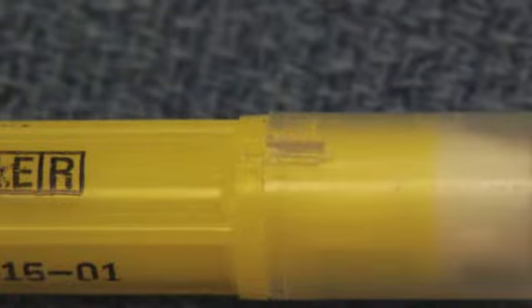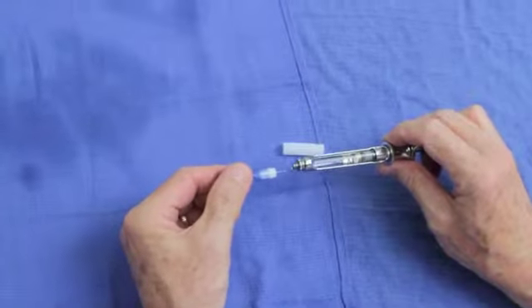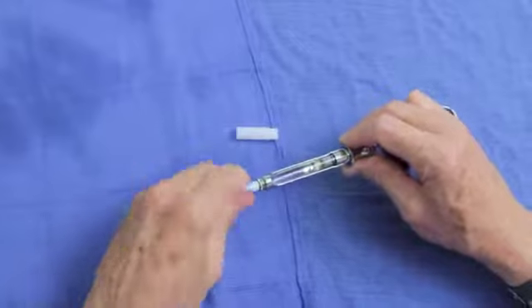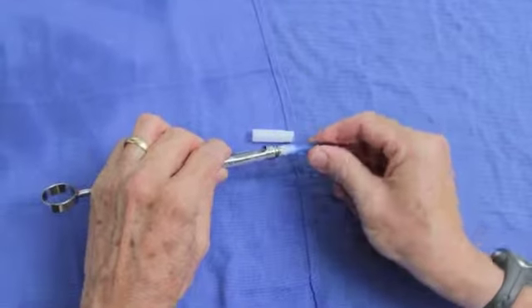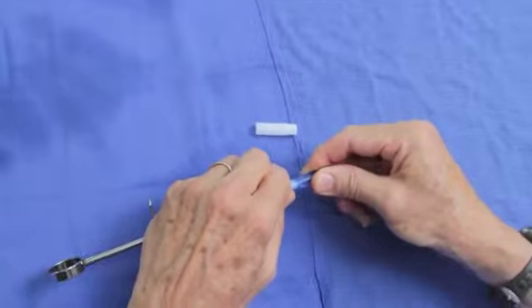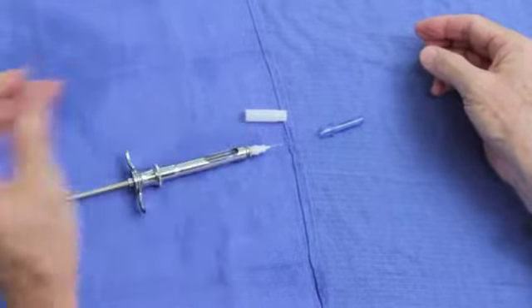With the needle, look for the seal, break the seal, remove the cap, and then take the short end of the needle, screw it into the needle adapter, piercing in through the diaphragm. Make sure the needle is perfectly secure and it's flush at the needle adapter. When you take the cap off, flex it slightly and then gently pull the cap off, revealing the needle underneath.